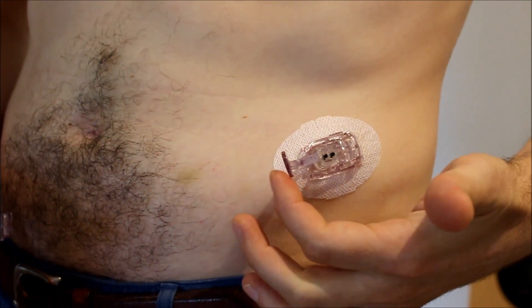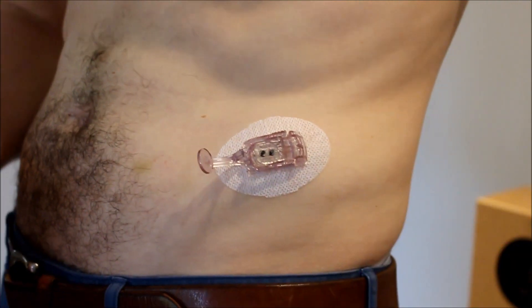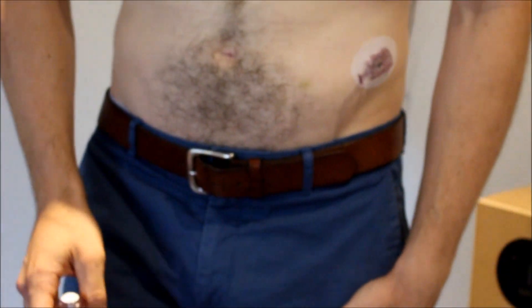We still have one little latch here — that serves a purpose so it needs to stay on there. The first time I did that it was pretty scary. I was used to sticking insulin needles in, but they're tiny and this thing kind of looked like a massive knitting needle — but it's not that scary after all, and if you get the right spot you can hardly feel it.